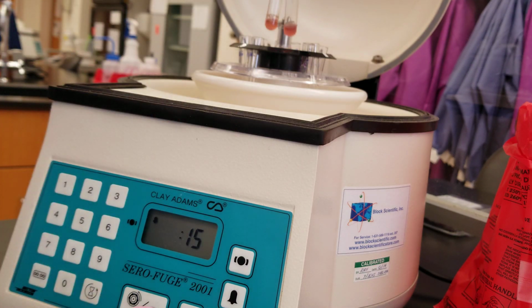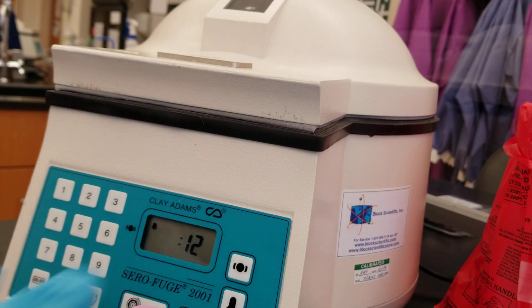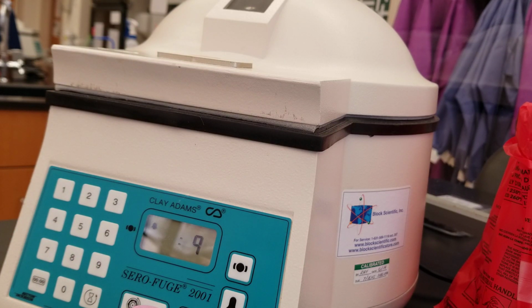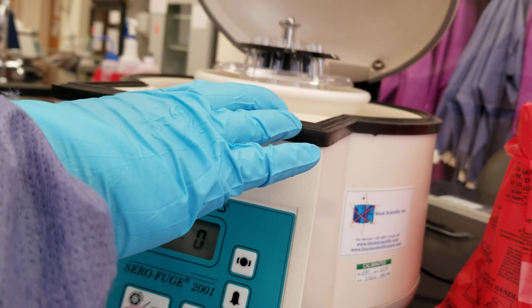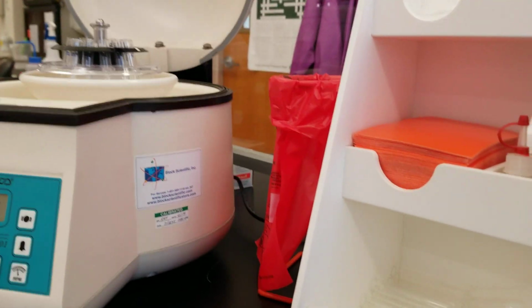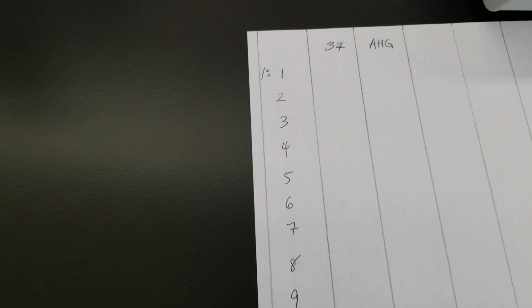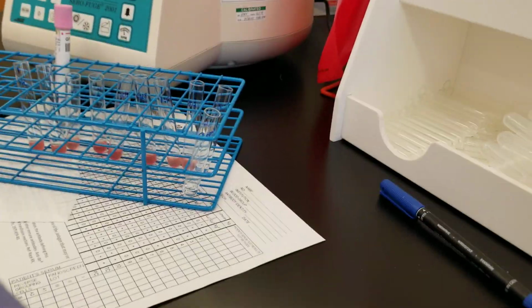And I can do the first two of my first. All right, so that'll be like that. I'm going to write down spaces to do the reactions. So I'll be right back. All right, so that first bit was done. And we can go ahead and read those. So I made a column, patient visit 1 and 2. So we're going to read them and then write them down. Sorry for the craziness here. It's on paper.